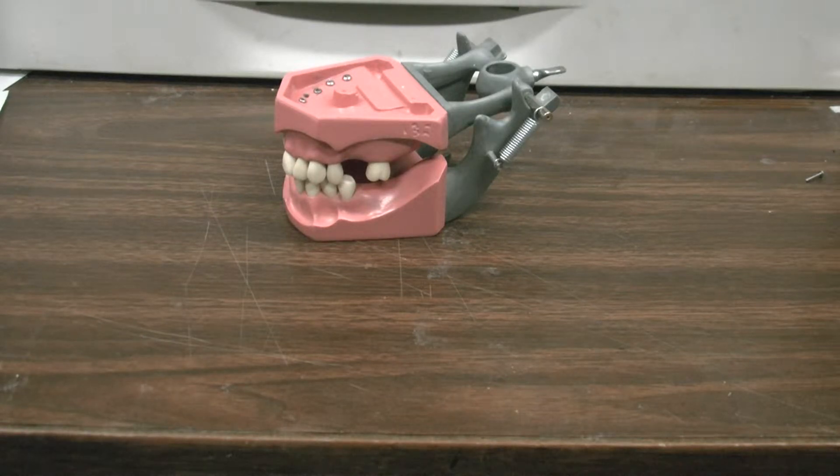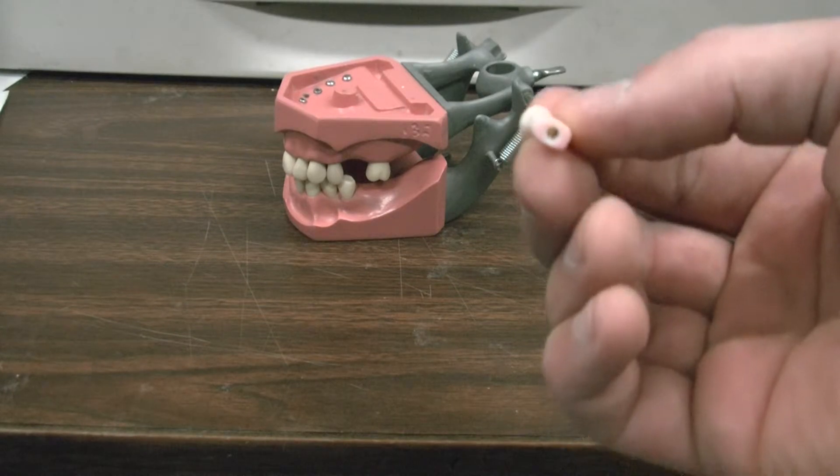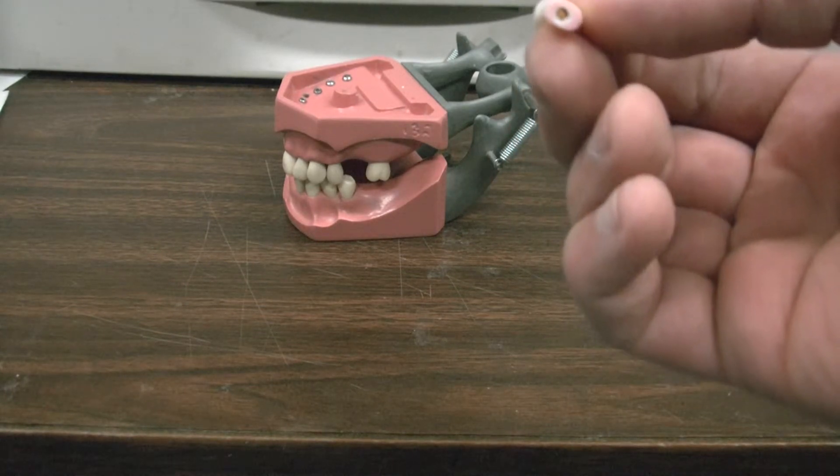There are problems with screwing teeth in. If you look at the screw hole on the operative teeth, you will see that there is a metal thread.